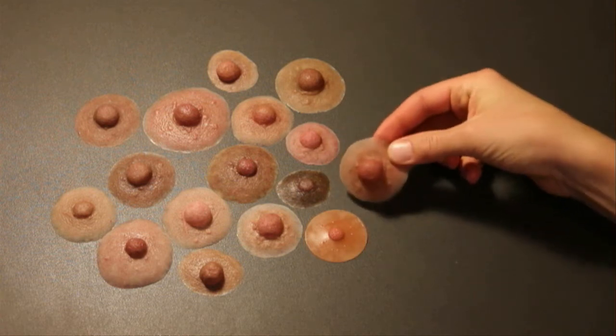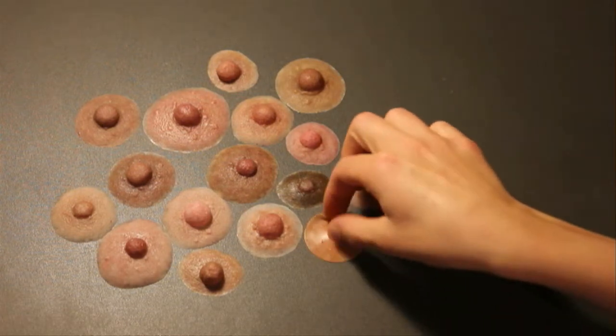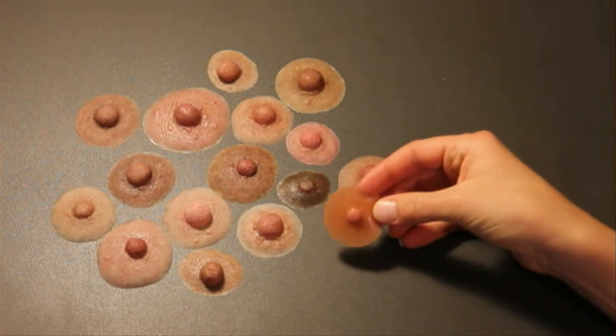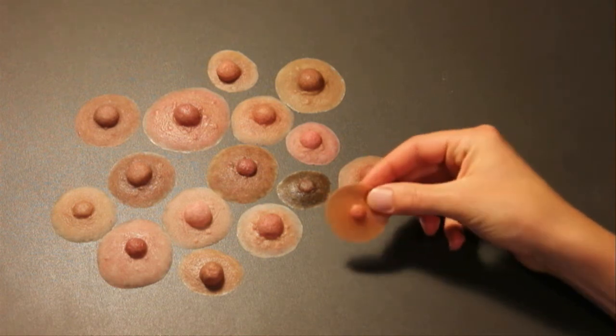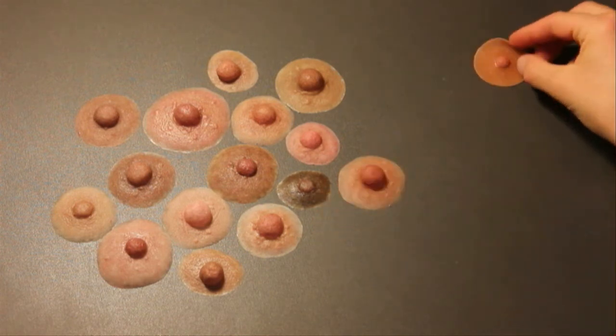Yielding a secure yet gentle adhesive system. Using the same type of adhesive with prostheses made by other companies will not yield the same results due to the different materials used in manufacturing.